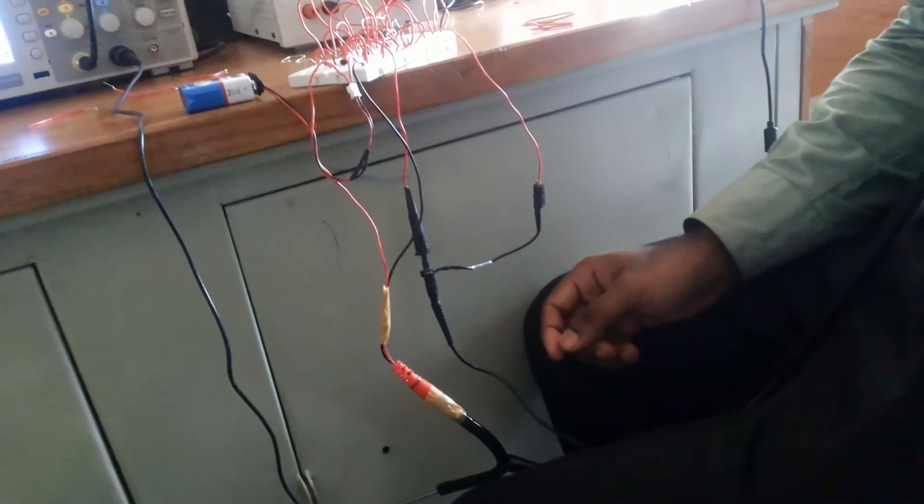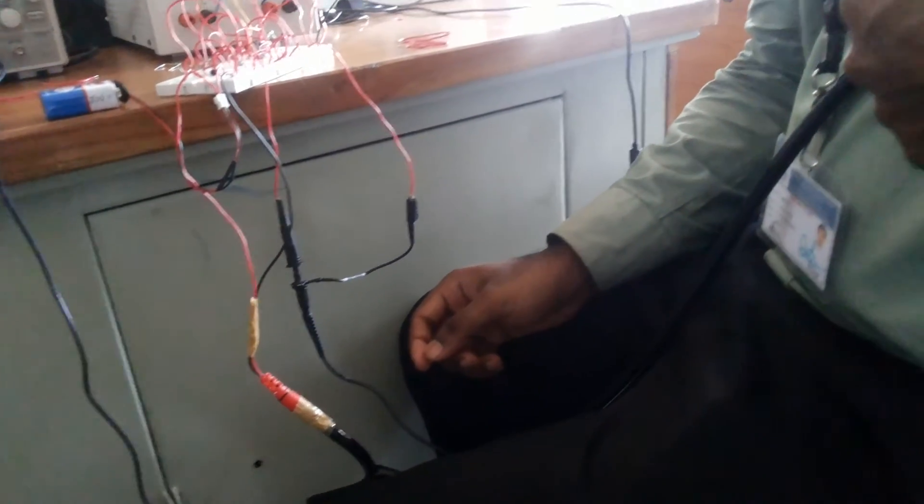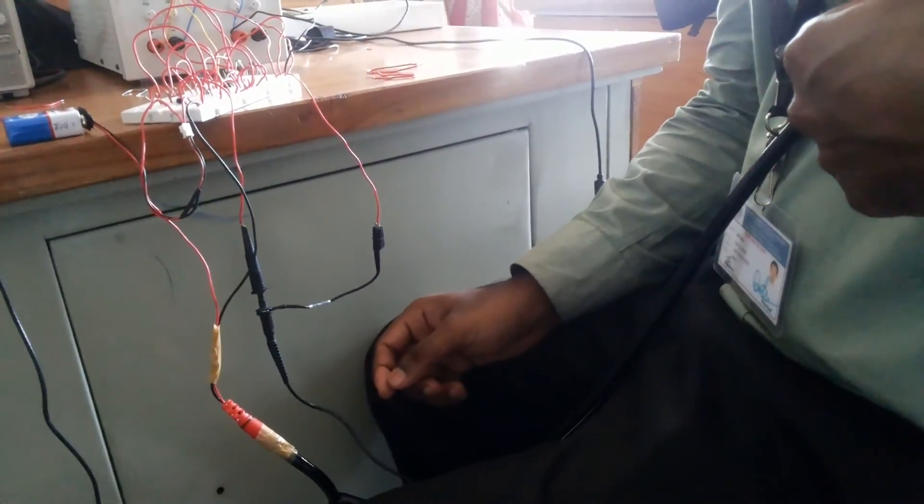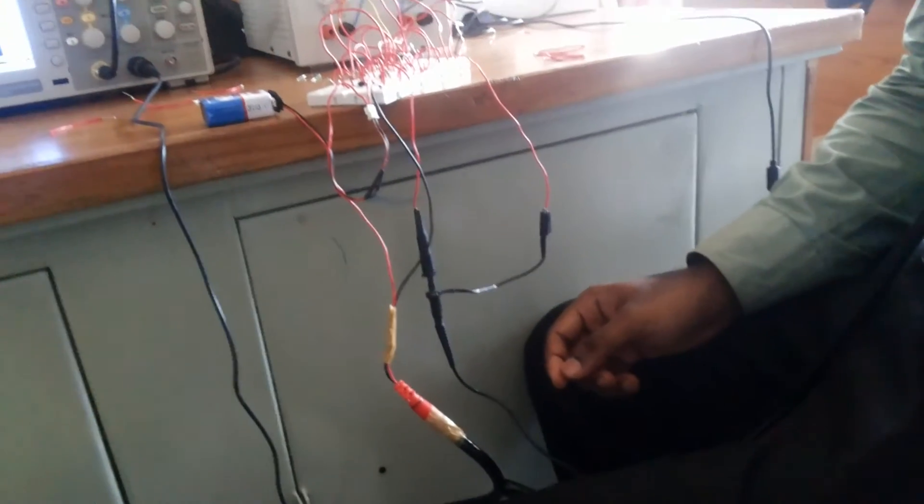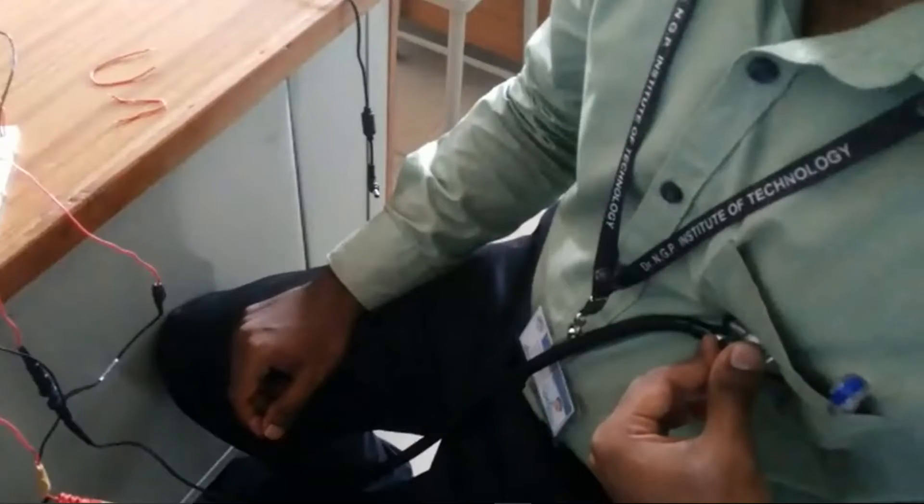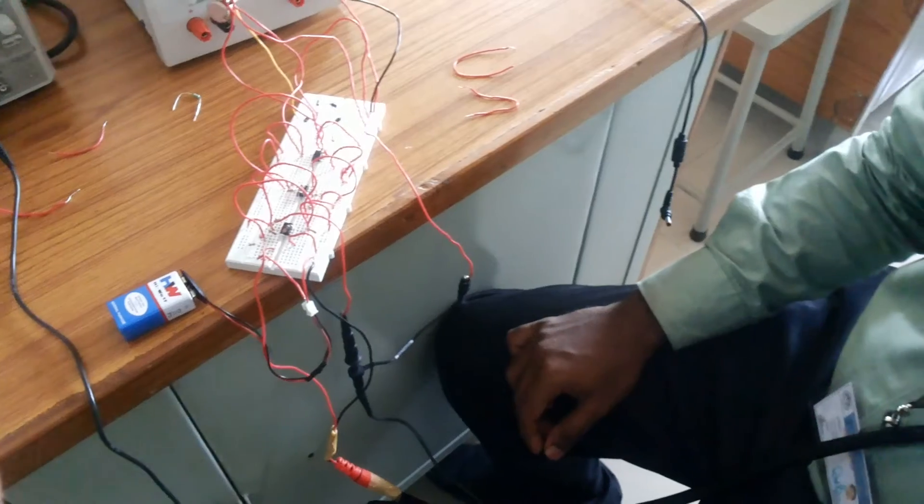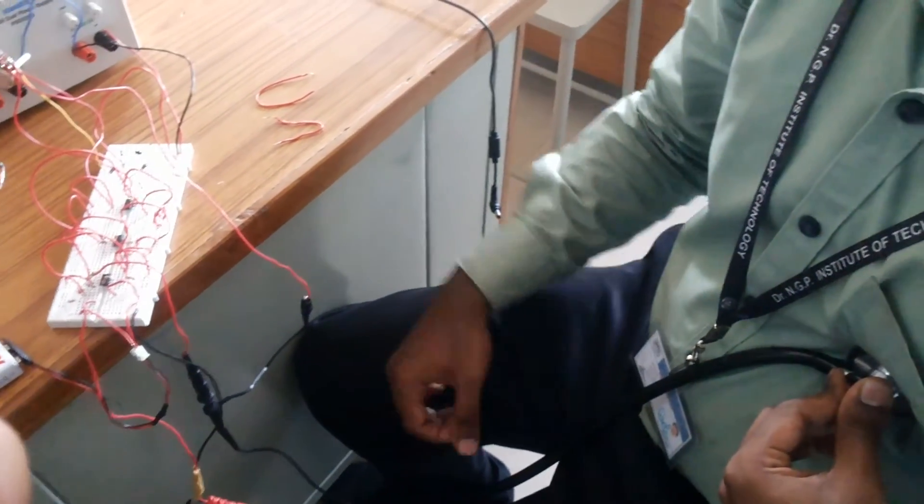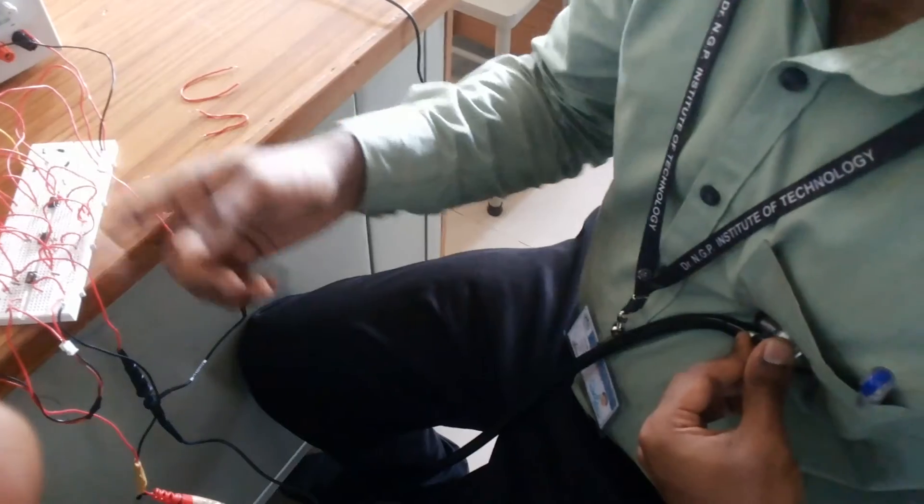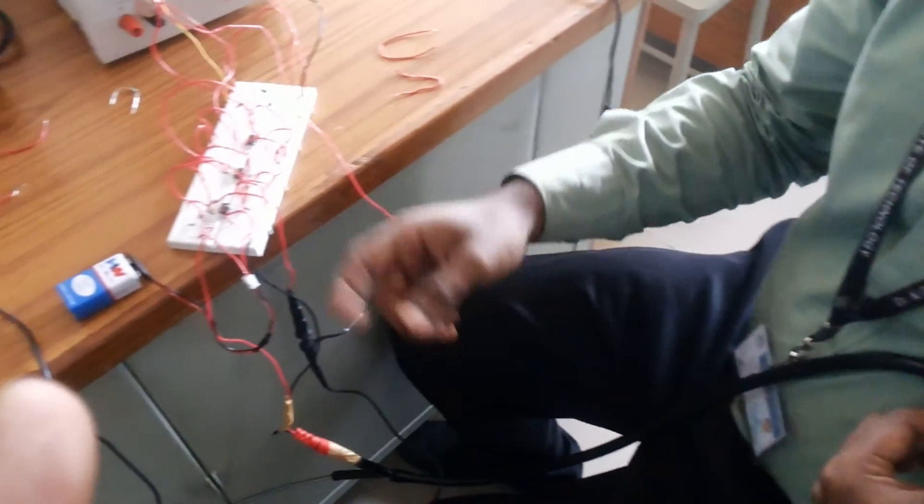Then comes the signal conditioning system which consists of a pre-amplifier, a low-pass filter, and a variable gain amplifier. When the diaphragm of the stethoscope is placed on the patient's chest, the heart sounds are sensed and the electret condenser microphone converts sound energy into electrical energy.